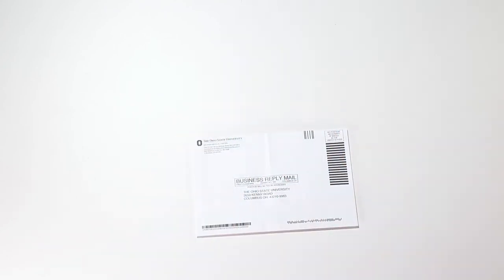Discard remaining supplies in the trash. You've now completed your participation. Thank you for participating.